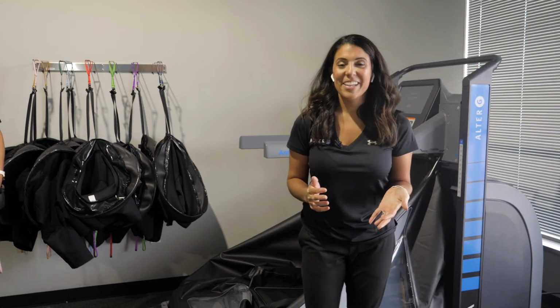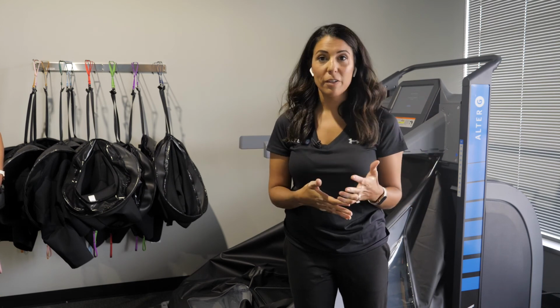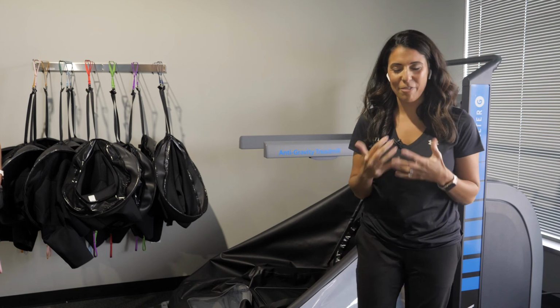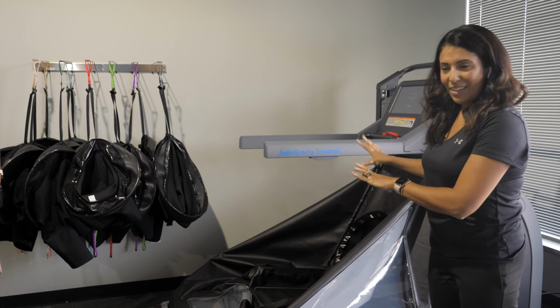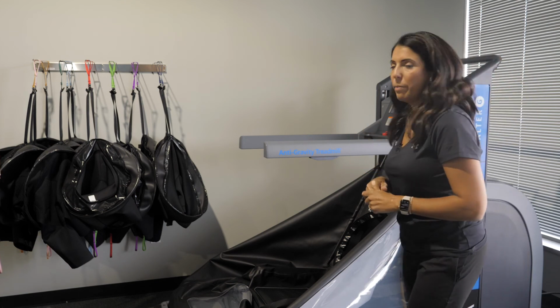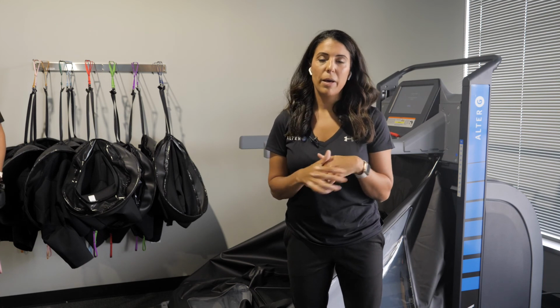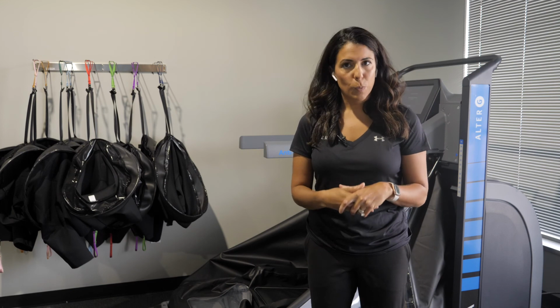So many more things we can cover, but today we really just wanted to give you kind of a nice overview of the features and benefits of the treadmill, especially featuring our new model. The V and the Fit, again, are the 2 frames that look like this, that are very similar. Again, it's all about the features, the speed, incline, capabilities of the models that vary, and the patient populations that you might use those features with.